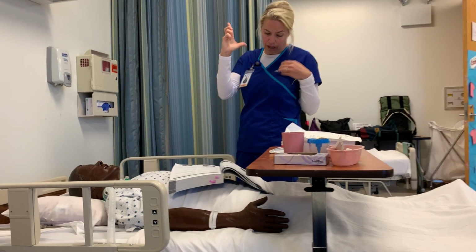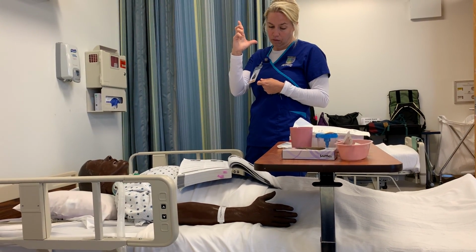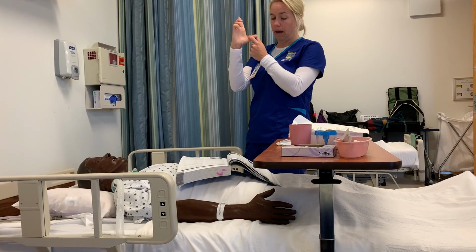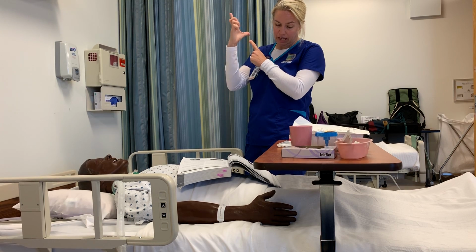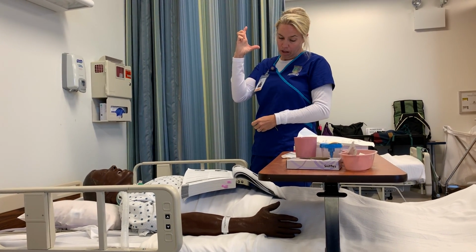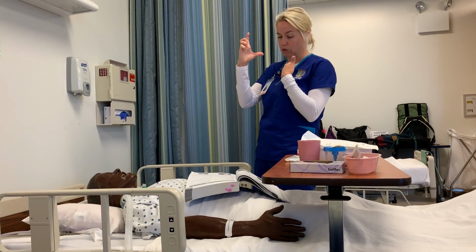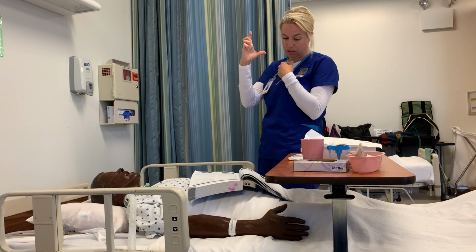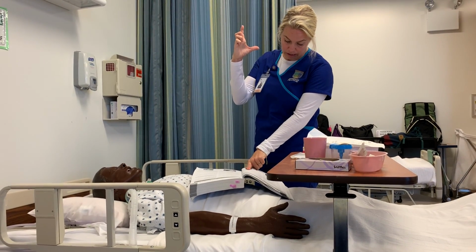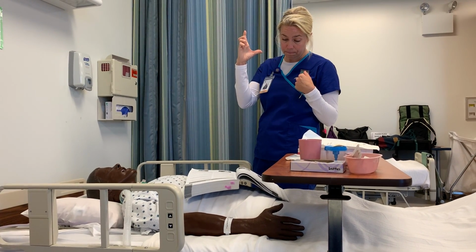And then with the inhaler properly positioned either way, the patient could readjust and have the thumb at the mouthpiece and the index or middle finger at the top. And then this ensures that the fine particles are being aerosolized. And then I would just have them empty their lungs and prepare to receive the medication.